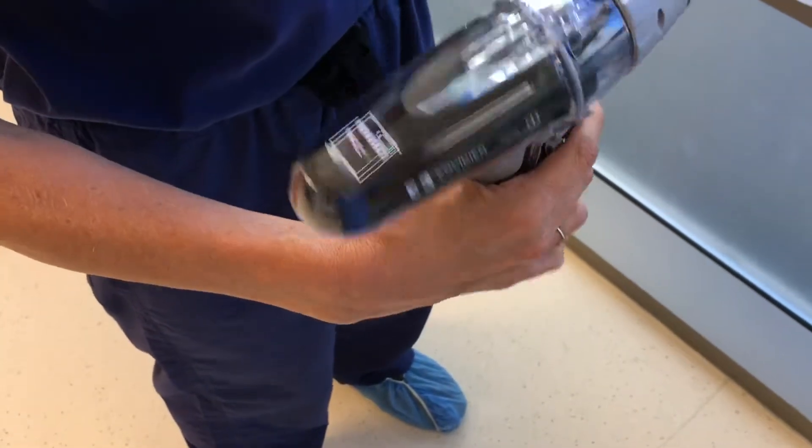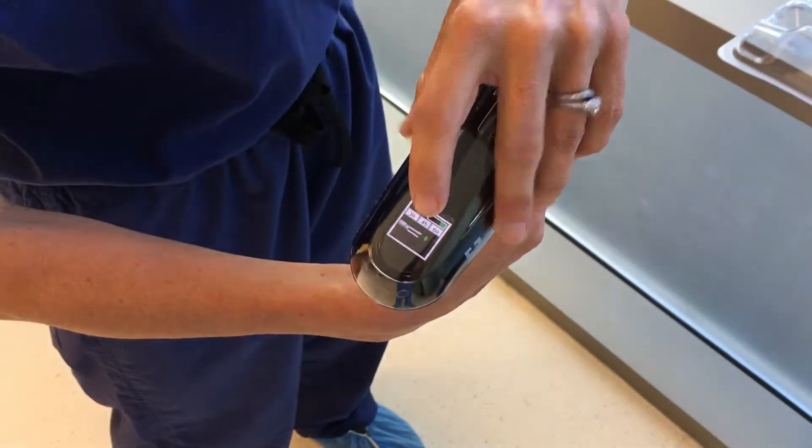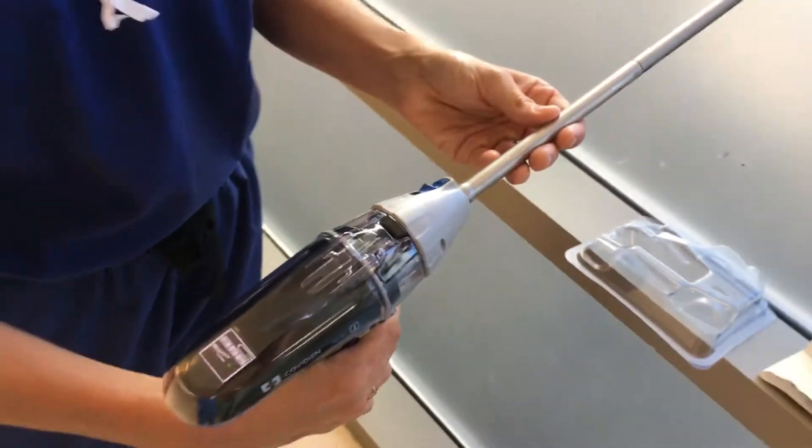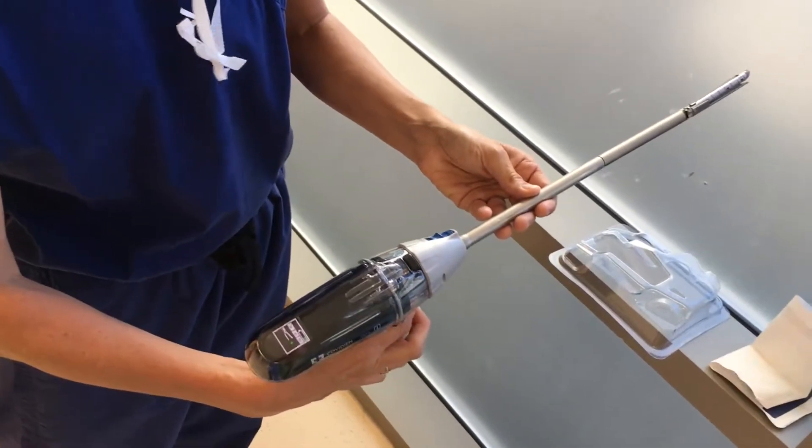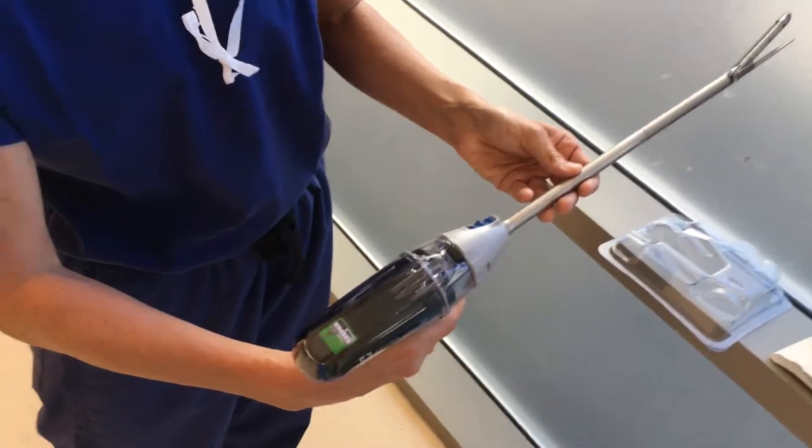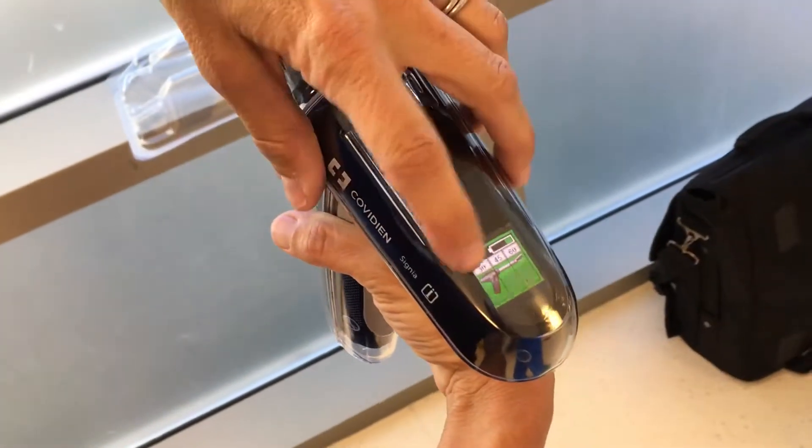Right now it's telling you to close the cartridge in order for the handle to recognize it, and then you want to open it. Let me show you the four buttons for opening and closing. Never use it unless you see three green swim lanes: one, two, three.